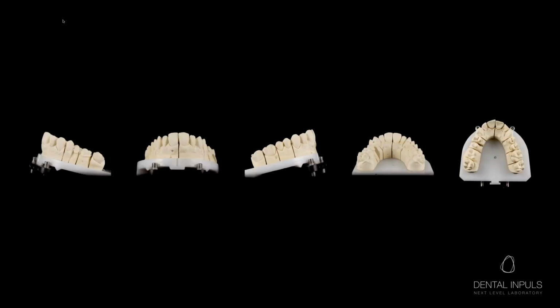So this is an example that we will use for our presentation. After analyzing the teeth that we are going to restore, we are going to analyze the teeth that we want to copy. Keep in mind that they need to have good morphology. That means no chipped, heavily abraded, or poorly filled teeth.